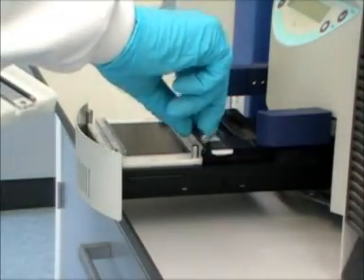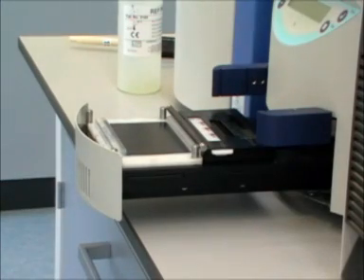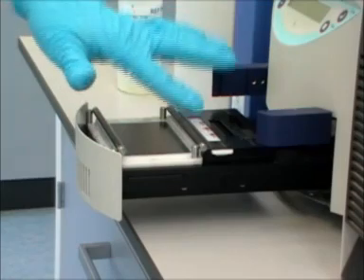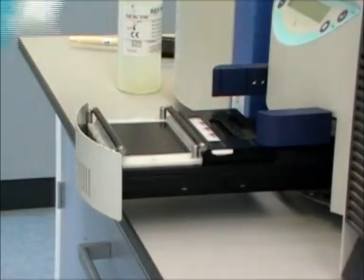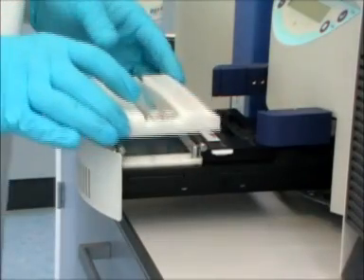The carbon electrode rods are placed in position on the gel buffer blocks at each end of the separating part of the gel, again ensuring that the electrodes are in contact with the metal posts. The gel cover is then put in place.